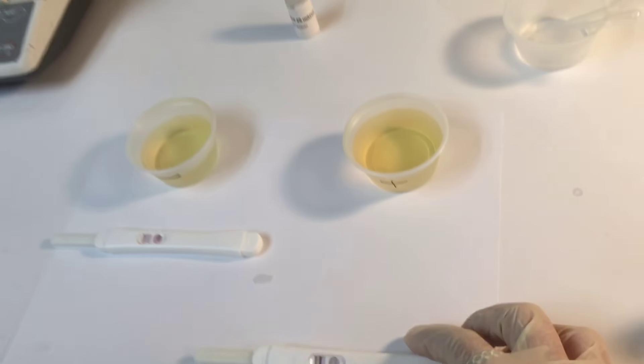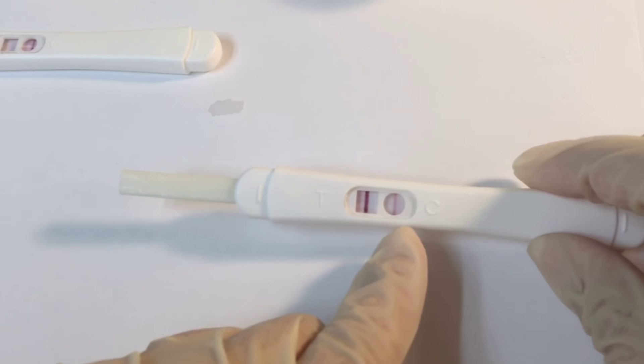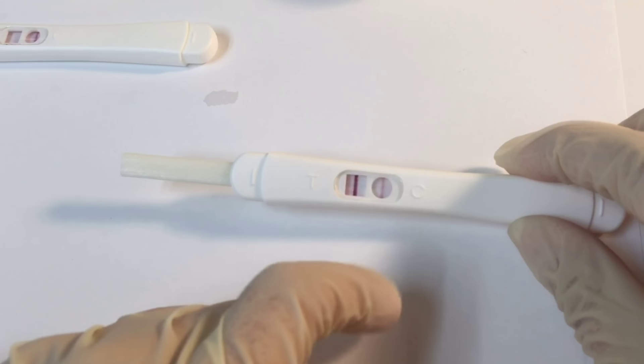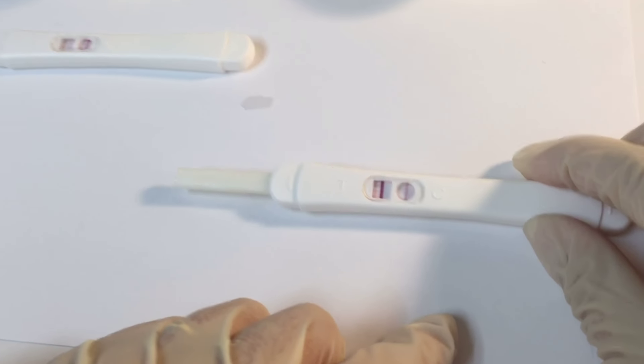But here it starts to appear—the control one is here and the one that says it's positive is also a purple line. So you're pregnant! You're pregnant!